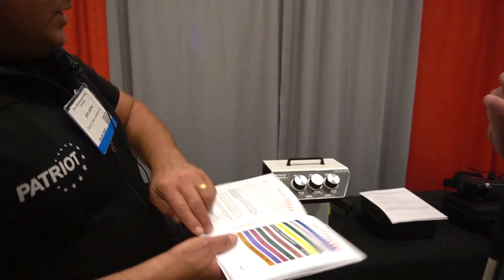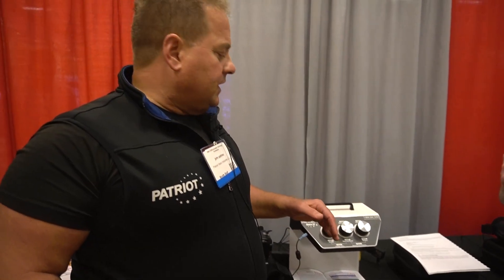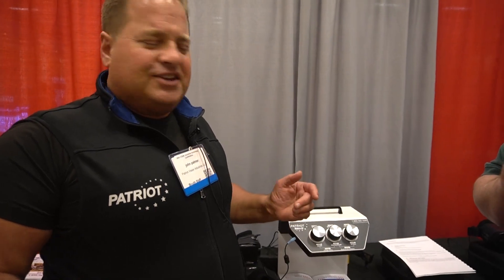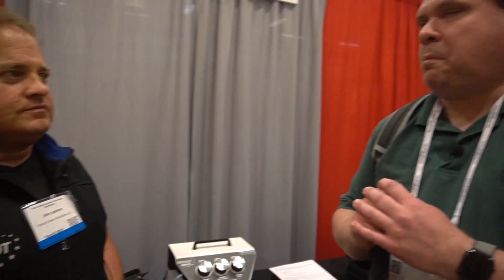You take whatever you want to read and put it right on the platform — it automatically prompts you and reads it. That was fast. What we wanted was ease of use. If Albert Einstein was in a room with us, he'd agree that's pure genius. The accuracy and the speed at which it can recognize text — it took the picture and was almost instantaneous. It's scheduled to release on May 1st, going nationwide and then to certain countries after that. The suggested retail price is $2,595.